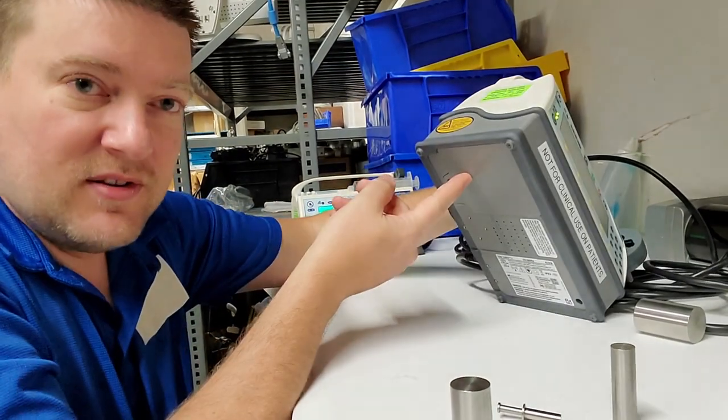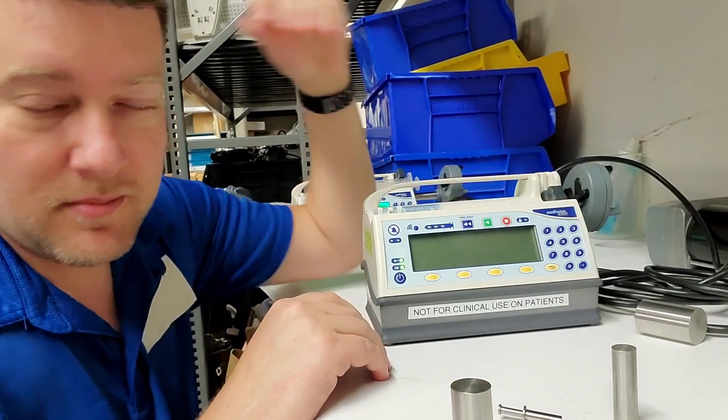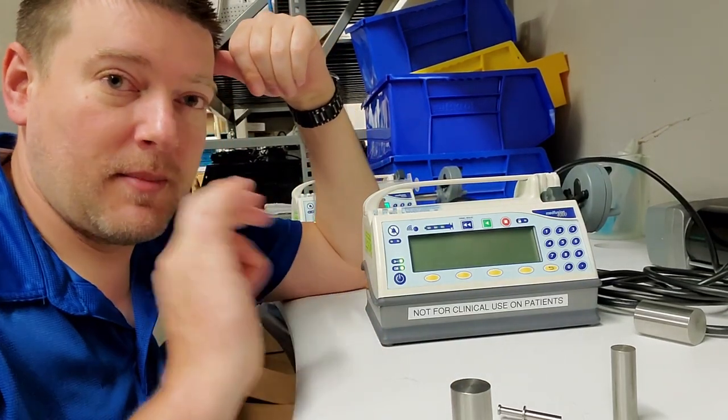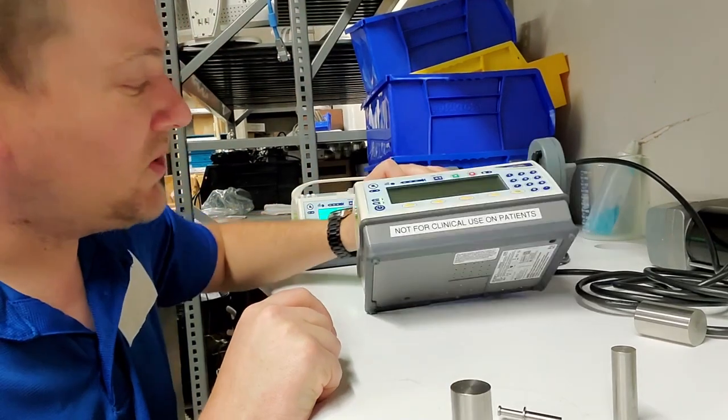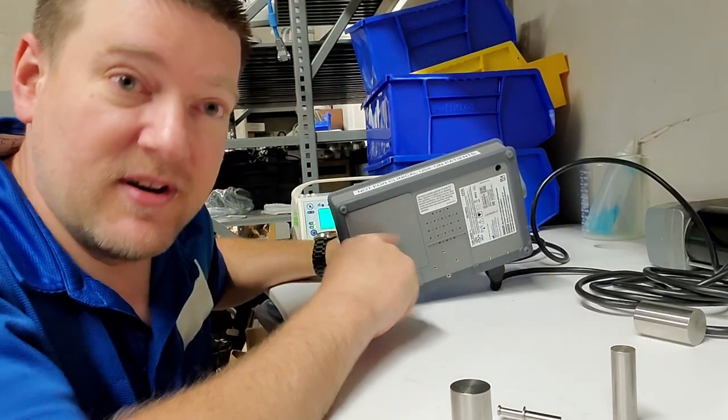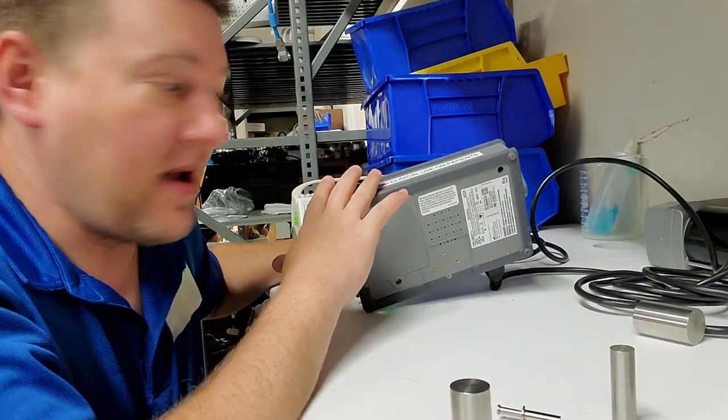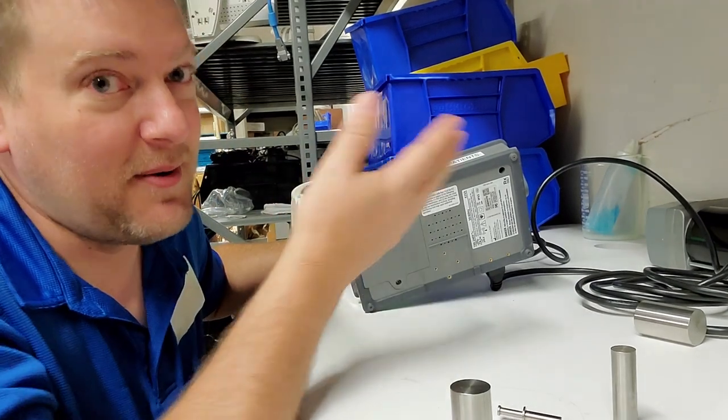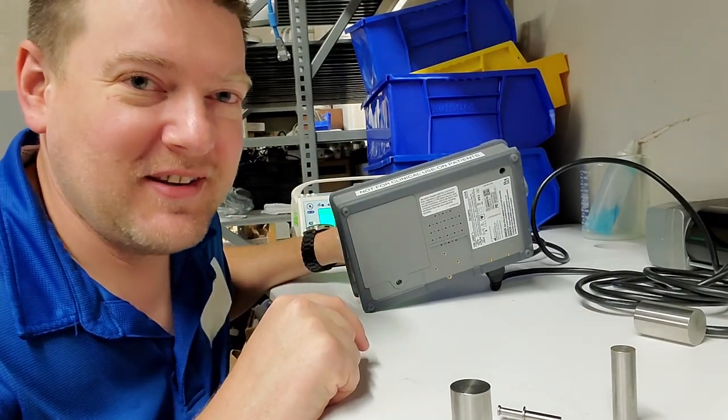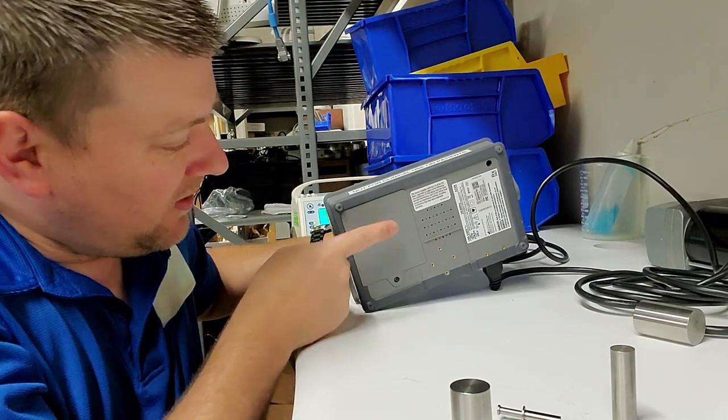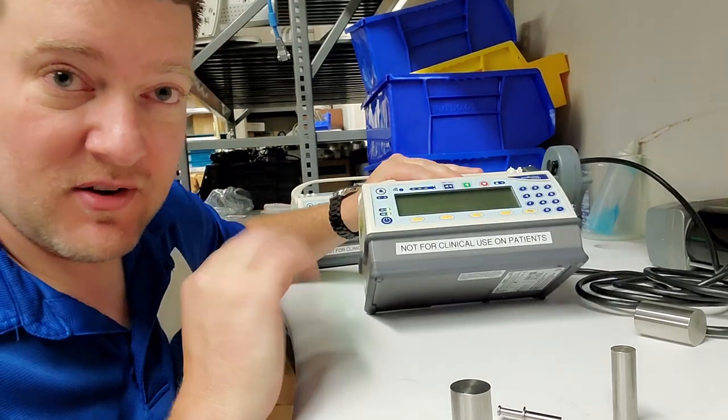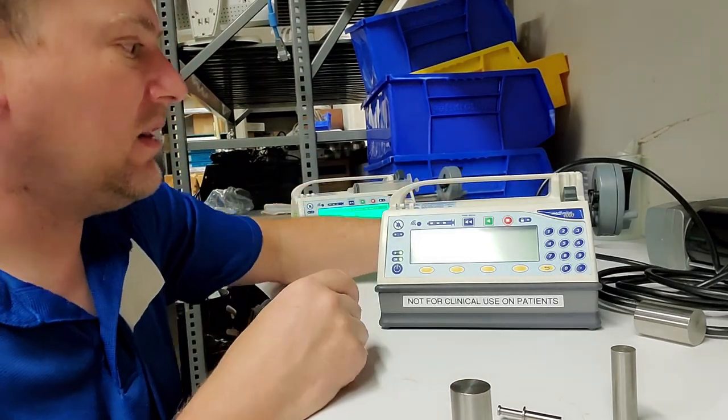Batteries for medical devices are typically replaced every three years, so ideally you'd have a battery change sticker. My hospital doesn't own these - they're here on demo - so I won't tear them apart. But underneath this cover right here there is an internal battery that allows it to stay running.